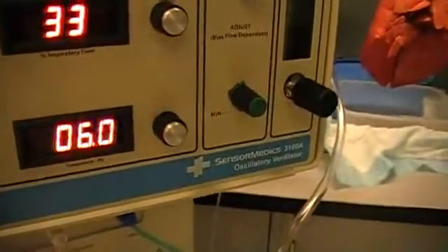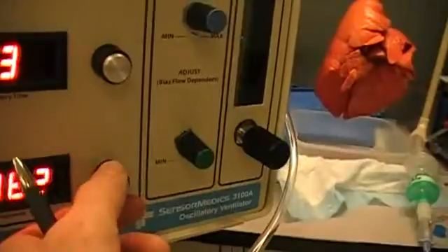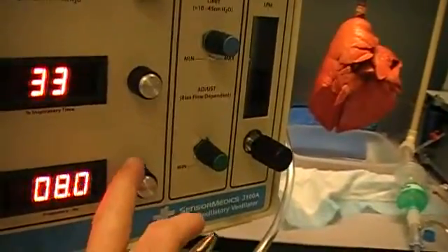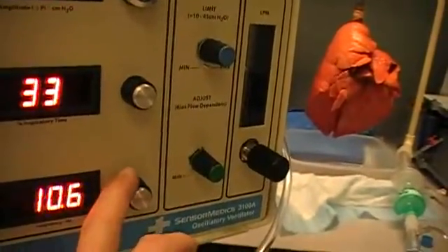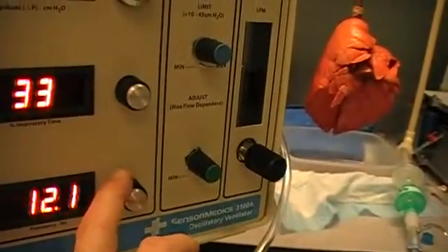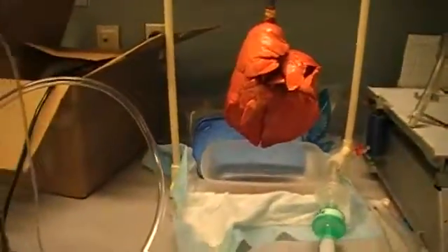The frequency can be adjusted to meet the resonant frequency of the lungs. If we increase the frequency, you can hear the sound change. It's not uncommon to use frequencies as high as 12 to 15 hertz on a neonatal patient. At higher frequencies, the actual tidal volume — the amount of gas movement between each breath — becomes less, but we can still achieve adequate gas exchange.